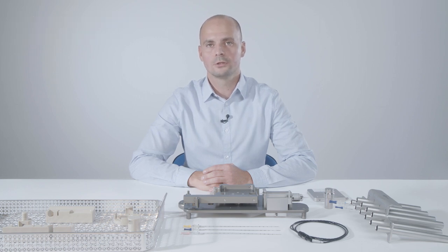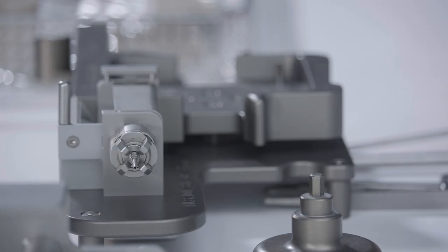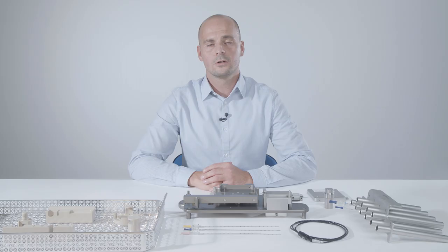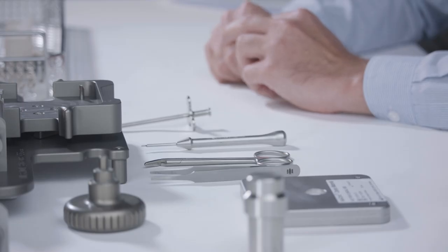Today I am pleased to be showing you the procedure of our isocord system used for the implantation of stranded iodine seeds. The design of isocord offers a convenient and flexible strand cutting under full radiation protection. The isocord seed chain is specially designed to reduce migration rates.